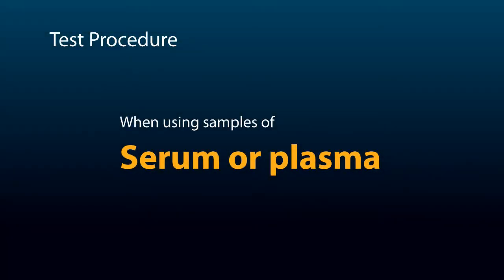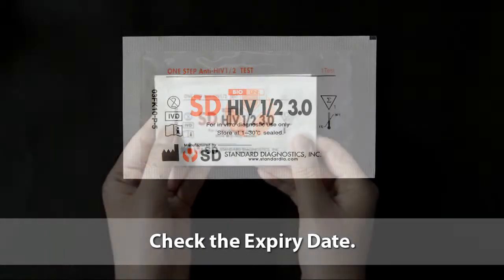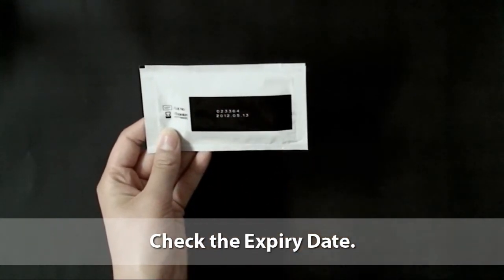When using serum or plasma, let's begin the test. Check the expiry date on the back side of the test pouch. If the expiry date has passed, use another kit.